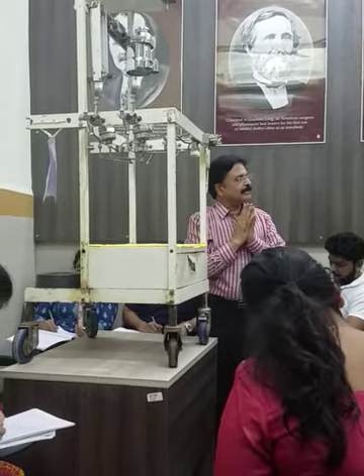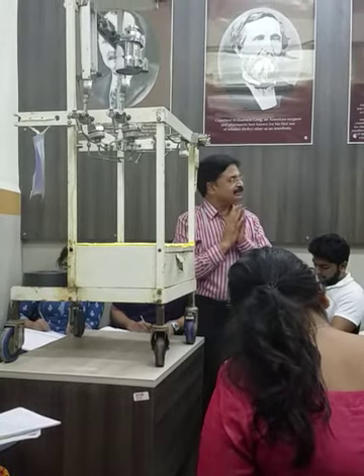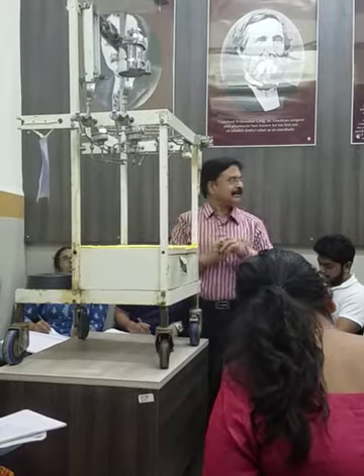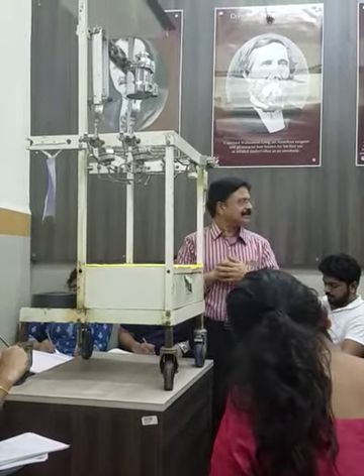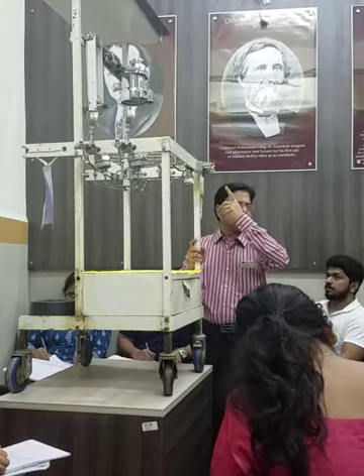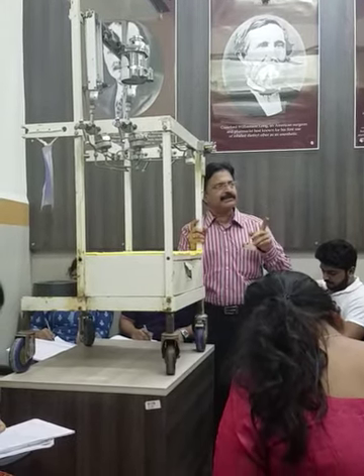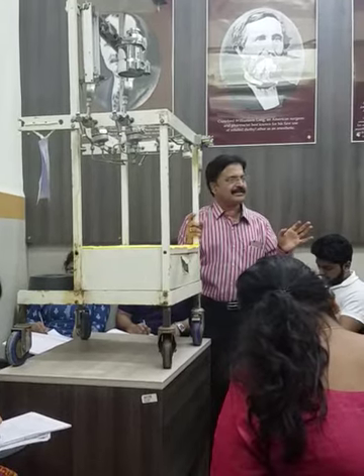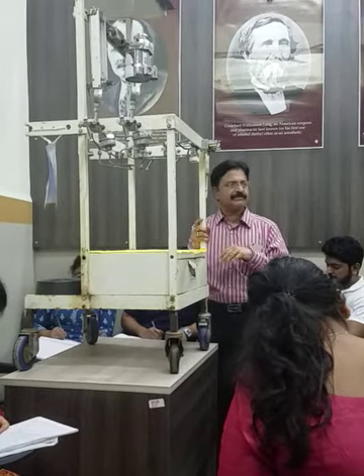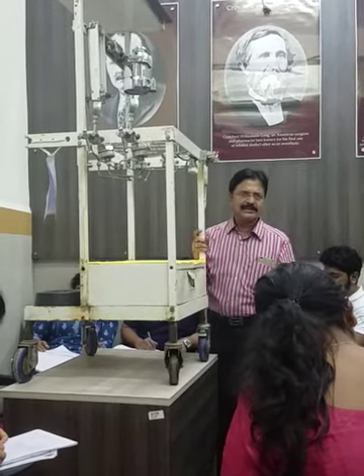Because there is a check valve in Datex-Ohmeda machines, you cannot perform a positive pressure leak test — you must use a negative pressure leak test. The check valve only allows checking up to that level and will not allow pressure to move to the other side. In Draeger, since there is no check valve, you can perform both positive and negative pressure leak tests — that is why the negative pressure leak test is called the universal leak test.